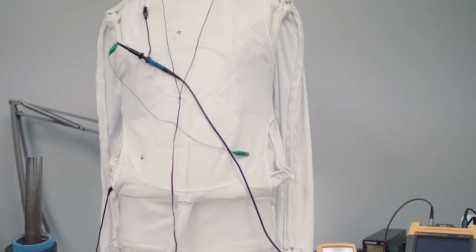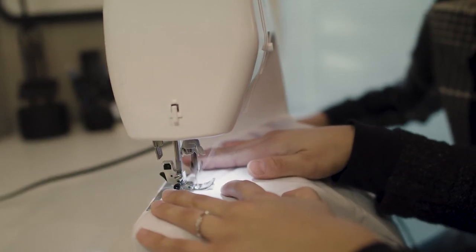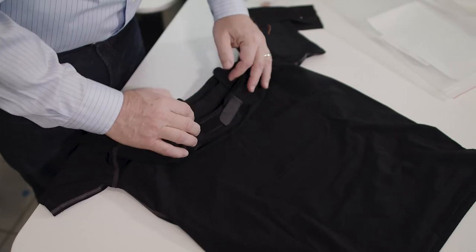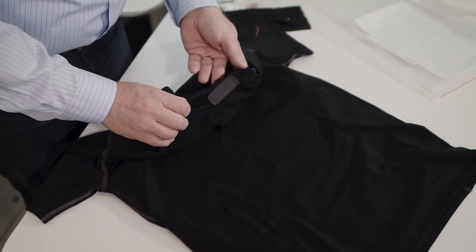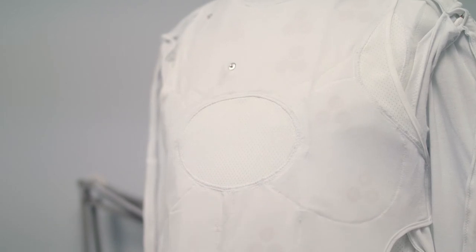When we started this project it obviously required fabric, and that's not my forte — I'm more in electronics. The fabric was a little more complicated, so I reached out to Steven Humbach. He also helped us with the sim shirt, which is kind of the very first version with just auscultation. He was able to structure the suit so it fits well and conforms to the body, and integrate all the technology we needed — Steven Humbach was a great asset.